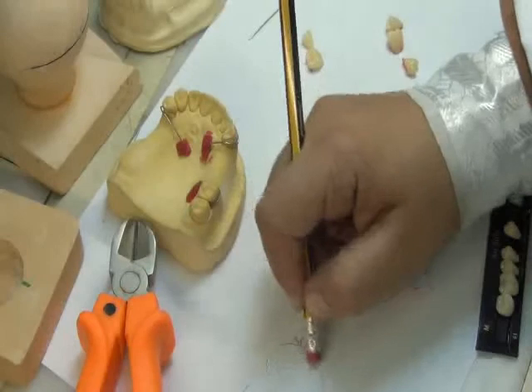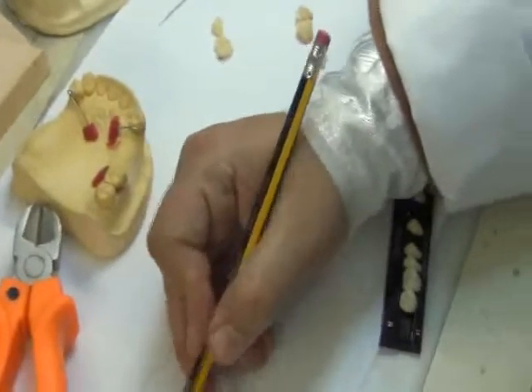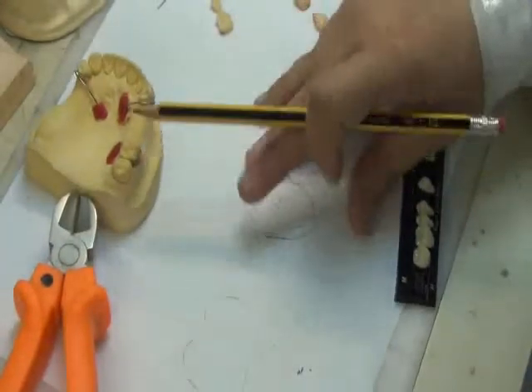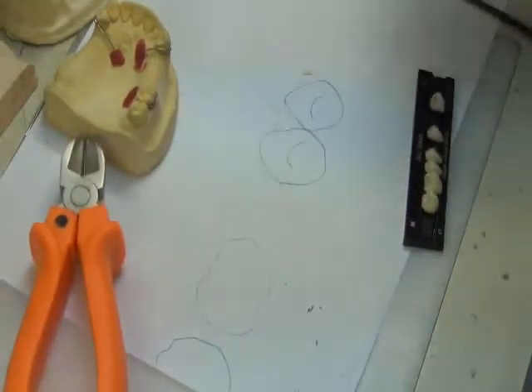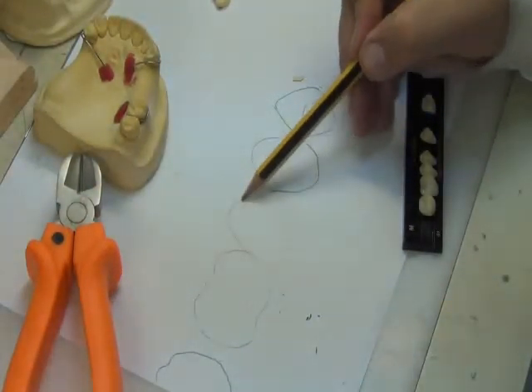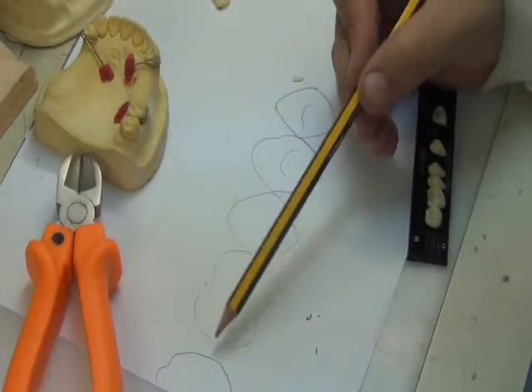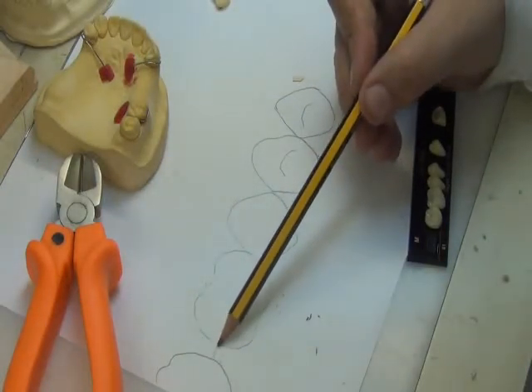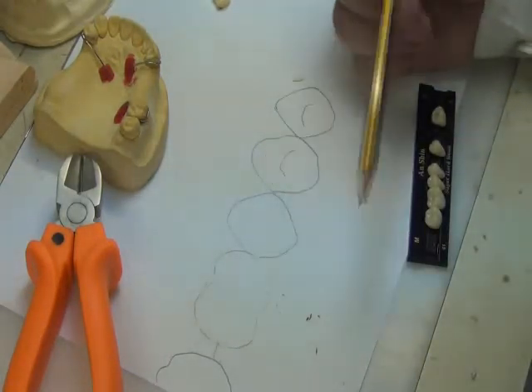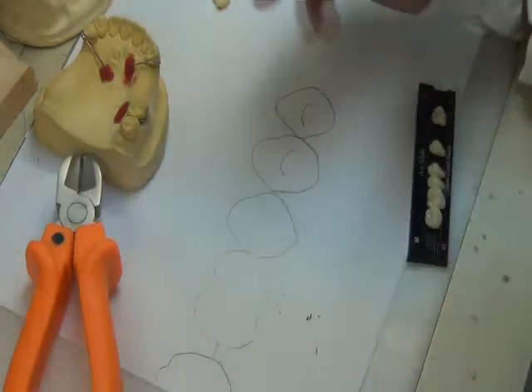I'm going to make it a bit lighter. So this is the replaced tooth, and I have tooth number 7 like here. So I have a space here between. This is tooth number 7. I'm trying to fit in a premolar and a molar, and the only size that the lab has leaves 1 to 2 millimeters distance between the artificial tooth and the natural tooth. We prefer that if it's the only size, and we are obliged to use this tooth form, because otherwise the teeth will be too large.